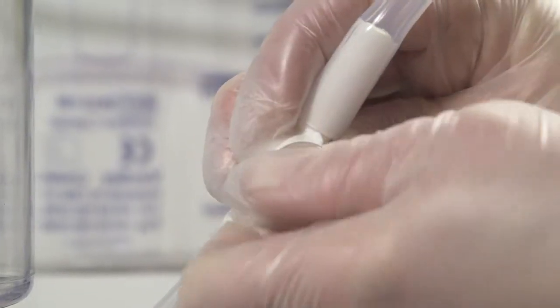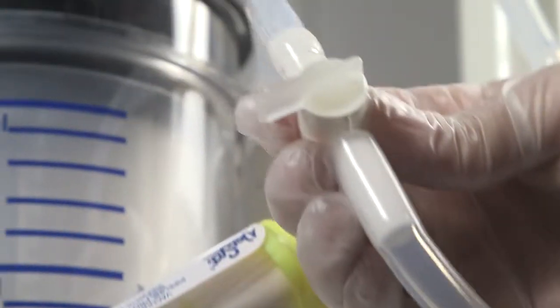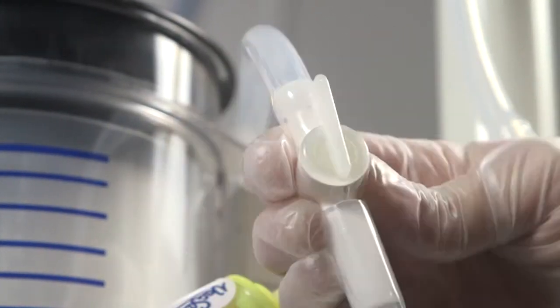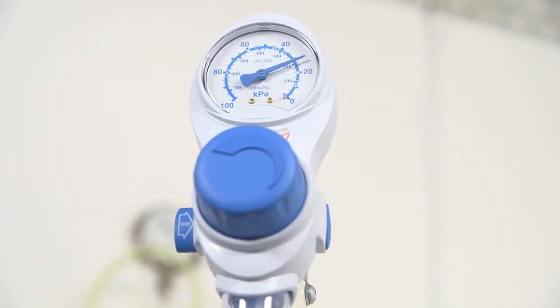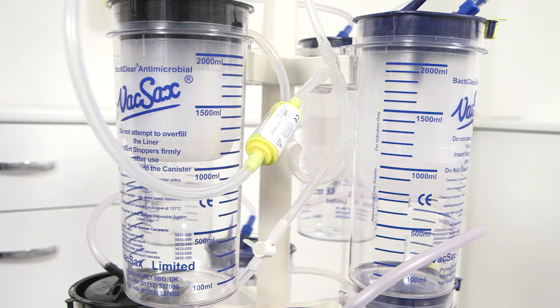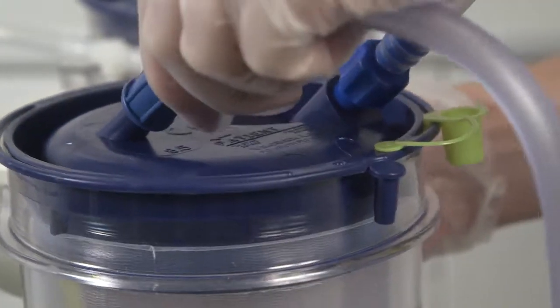Then move and connect the black vacuum connector into the top black lid liner. Now close the bottom siphon tap and open the top siphon tap. Switch on the vacuum and set to high, and wait until all the liners have expanded into the canisters.